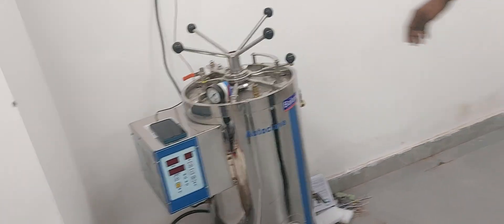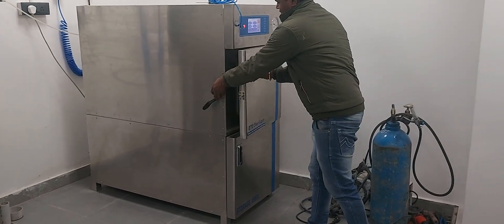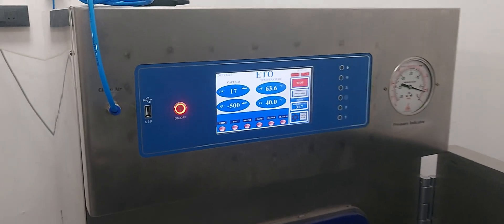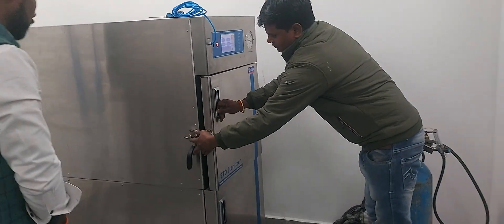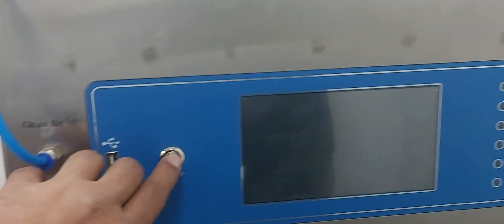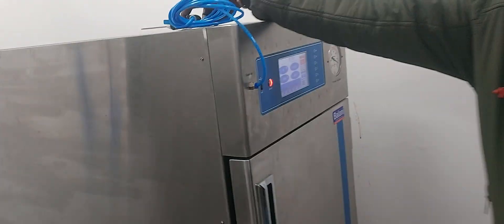This is the ETO sterilizer. The ETO process is one of the most popular sterilization technologies at present, because for all heat-sensitive items, an ETO sterilizer is needed. Our ETO sterilizer comes with both a sterilization chamber and a storage unit, giving you the freedom to store materials in the bottom. It also has a smart on/off control and a built-in air gun system.